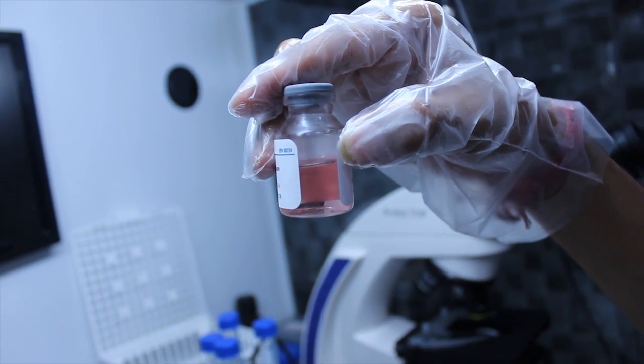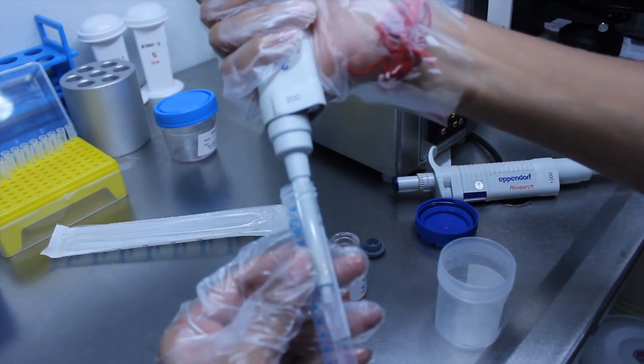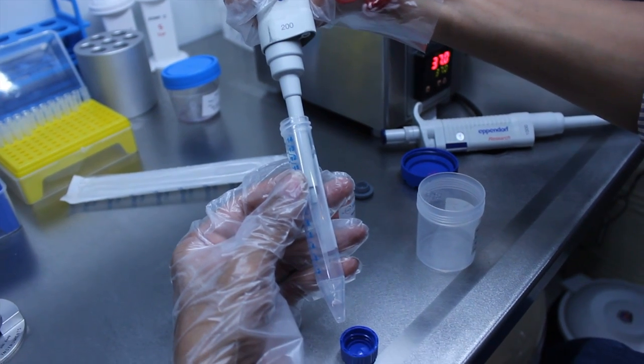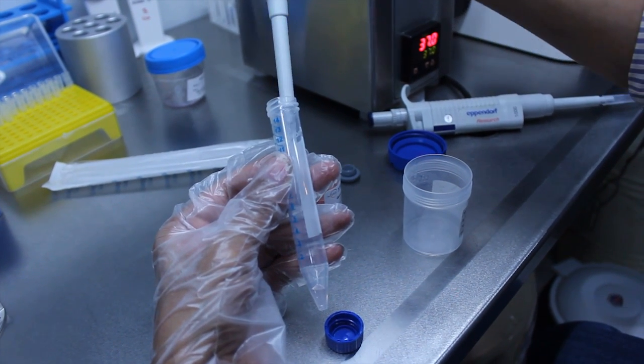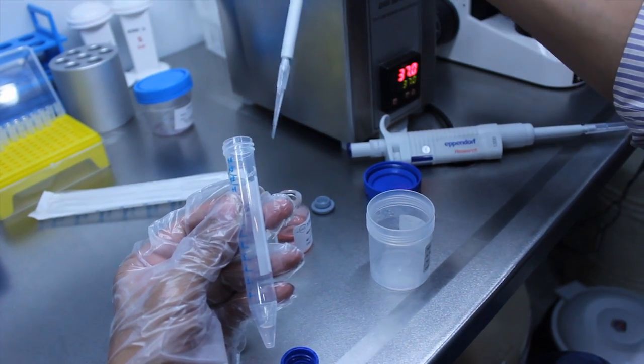This is sperm freezing media. We take out the freezing media as required, depending on how much quantity of sample we want to freeze.